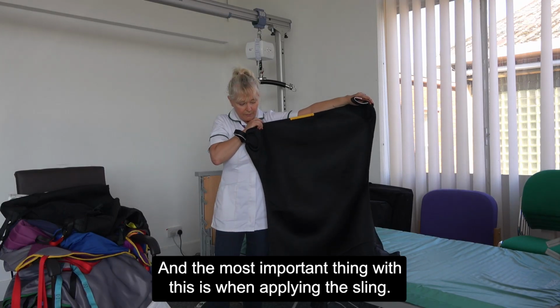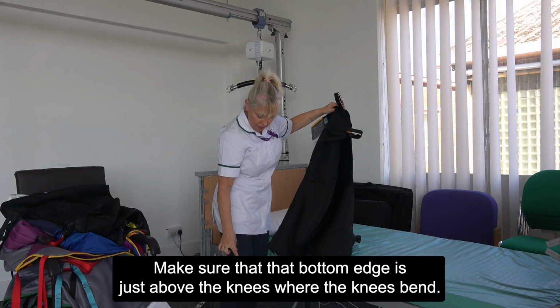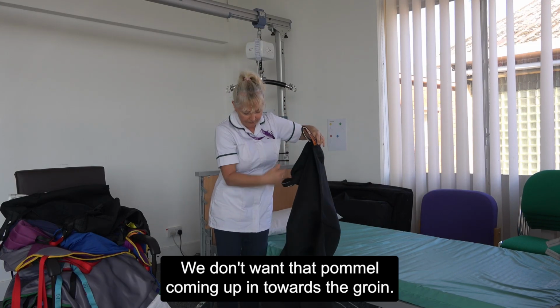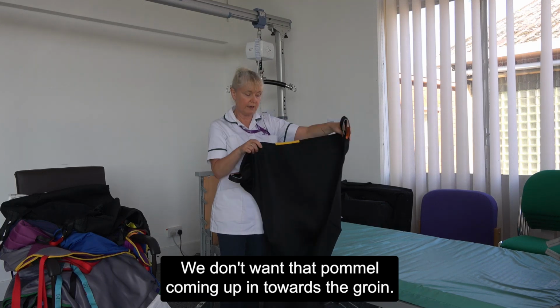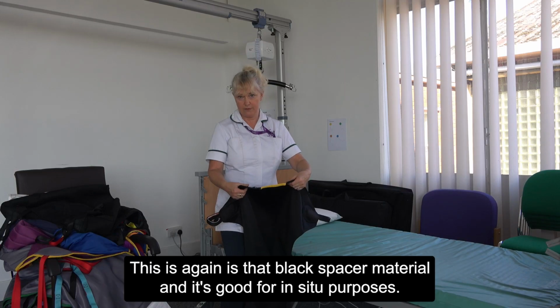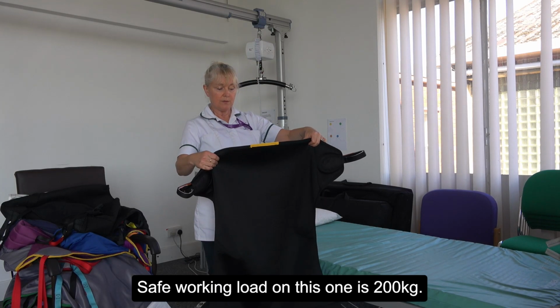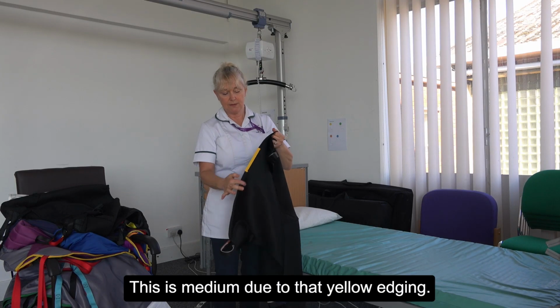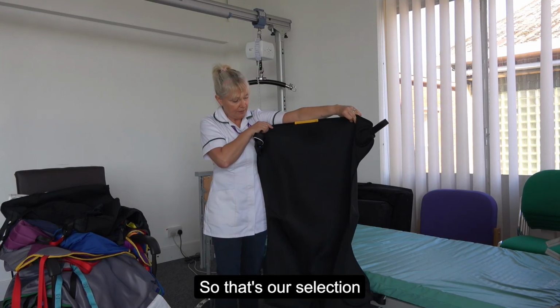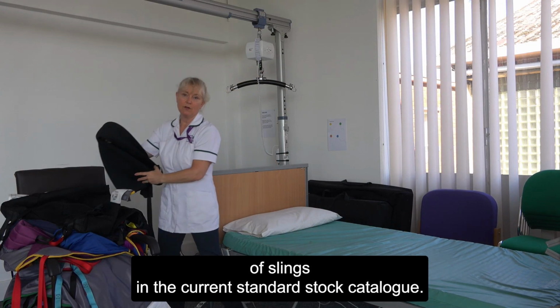The most important thing with this is when applying the sling, make sure that that bottom edge is just above the knees, where the knees bend. We don't want that pommel coming up in towards the groin. This again is that black spacer material, and it's good for in situ purposes. Safe working load on this one is 200 kilograms. This is a medium due to that yellow edging. So that's our selection of slings in the current standard stock catalogue.